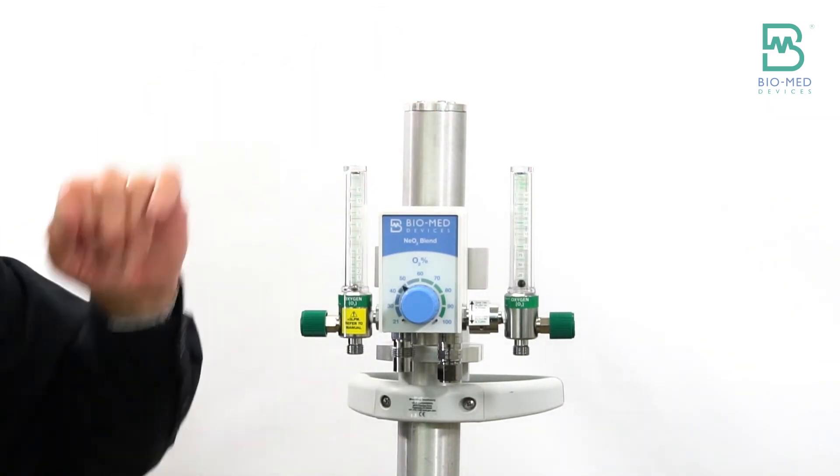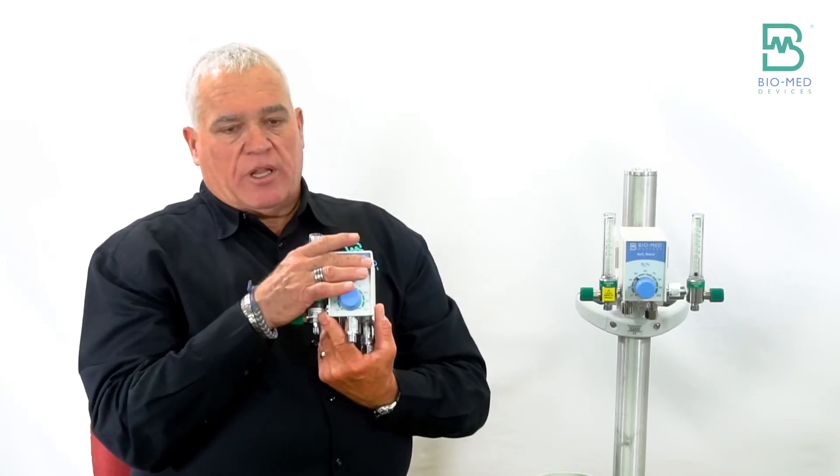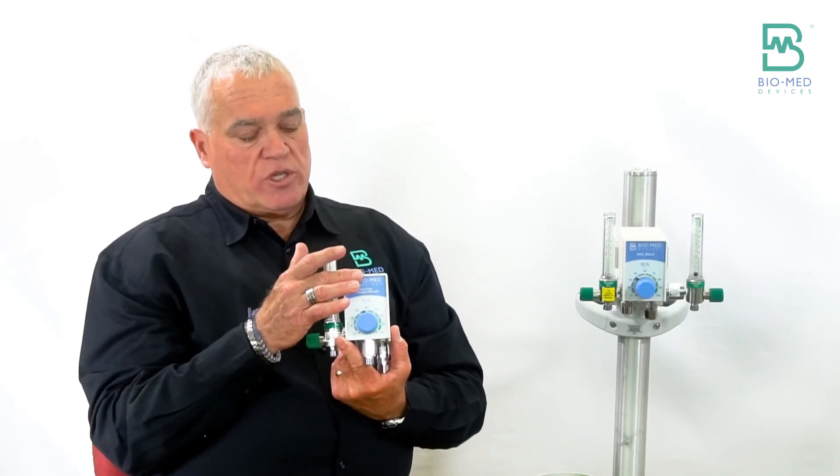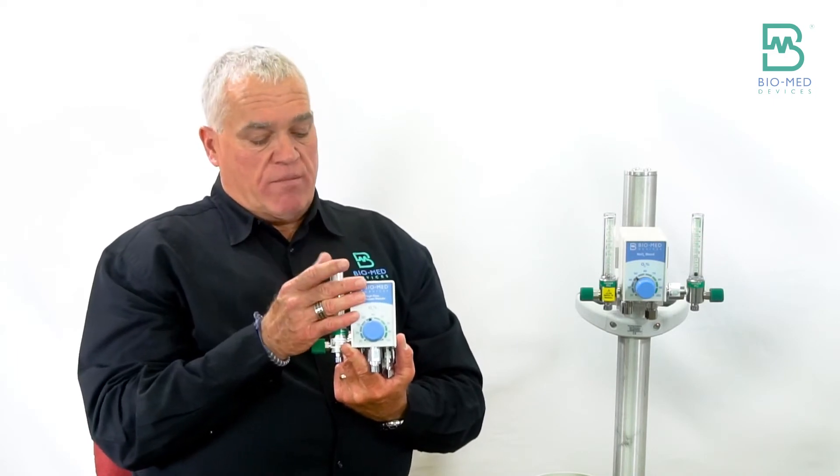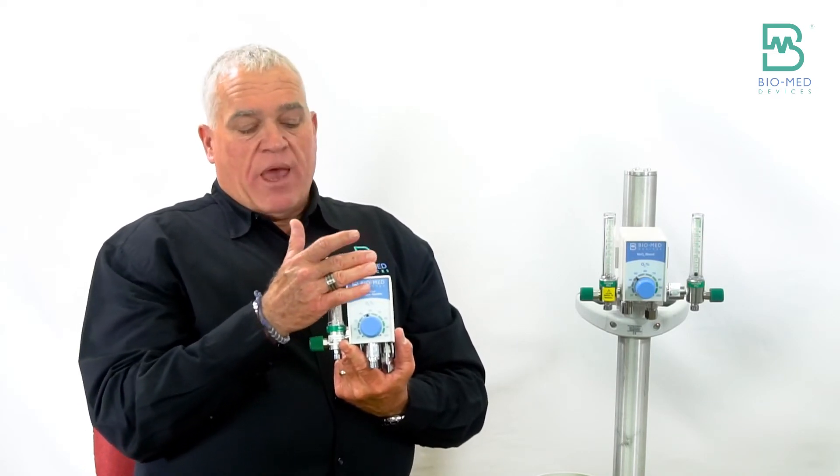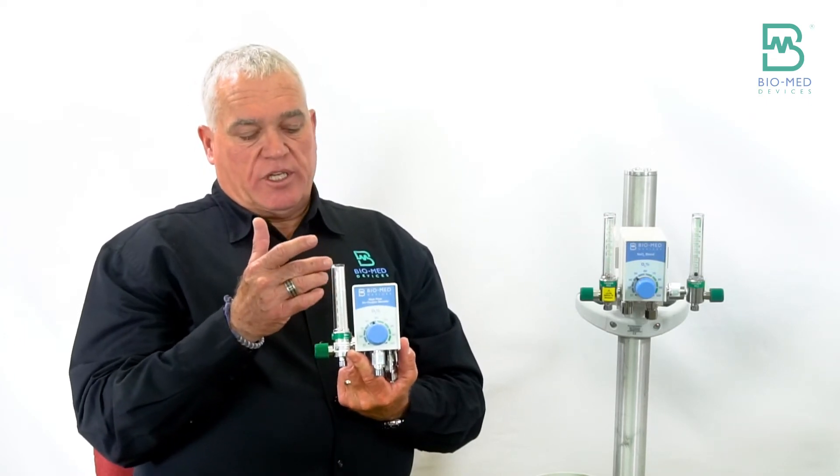The other use for blenders is the high flow blender. Typically, high flow blenders used to be used back in the days when the blender would actually supply the gas supply for the ventilator. Today, the main really the only application for high flow blenders is with a high flow nasal cannula.